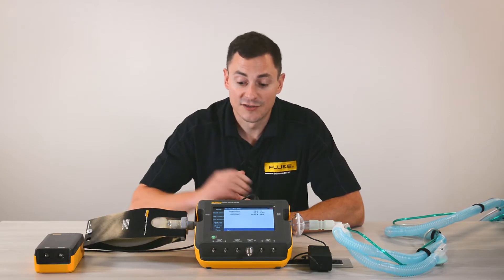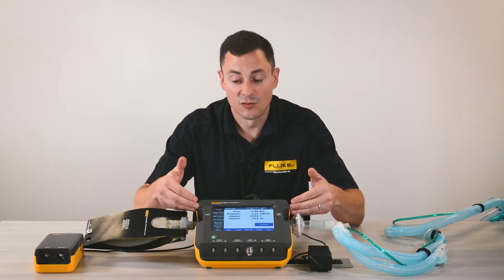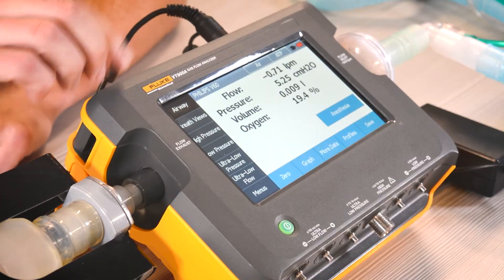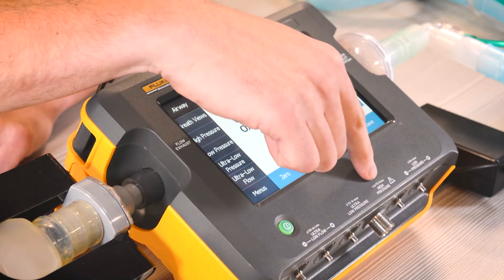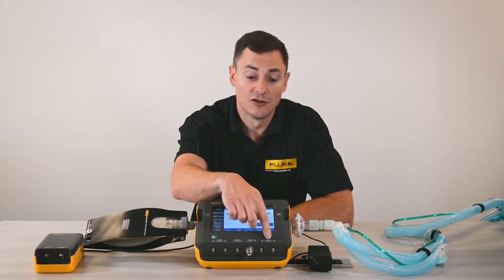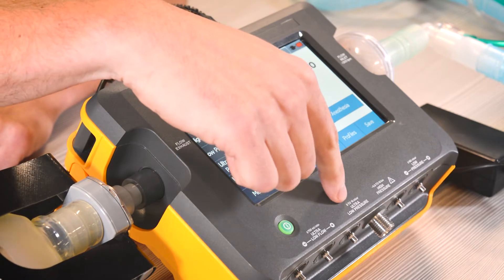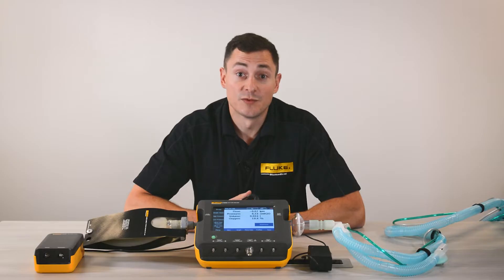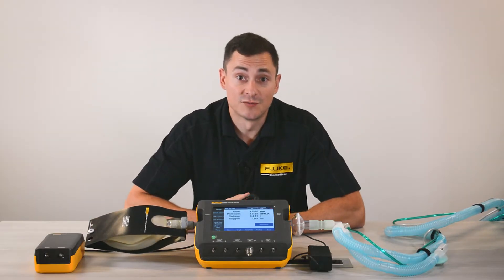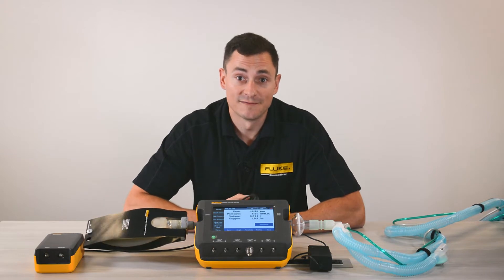Additionally, if you're testing pressure — I have airway pressure connected here — but we can also measure high pressure up to 10 bar, low pressure, and ultra low pressure down to 10 millibar. This will help you replace up to four different types of digital pressure meter depending on what you're measuring.